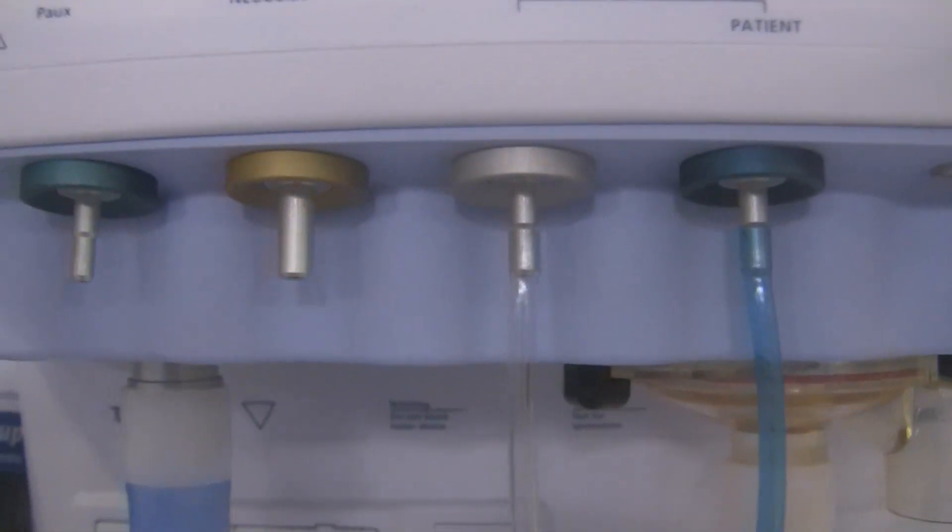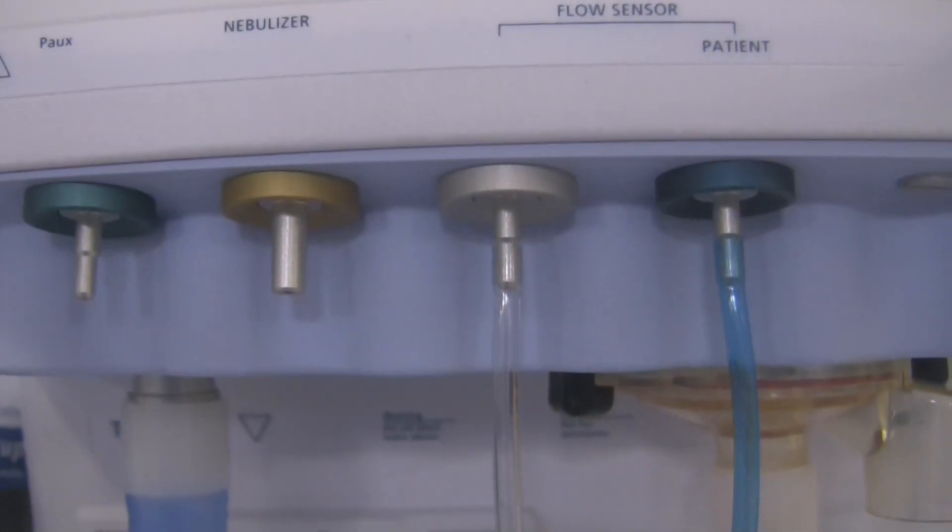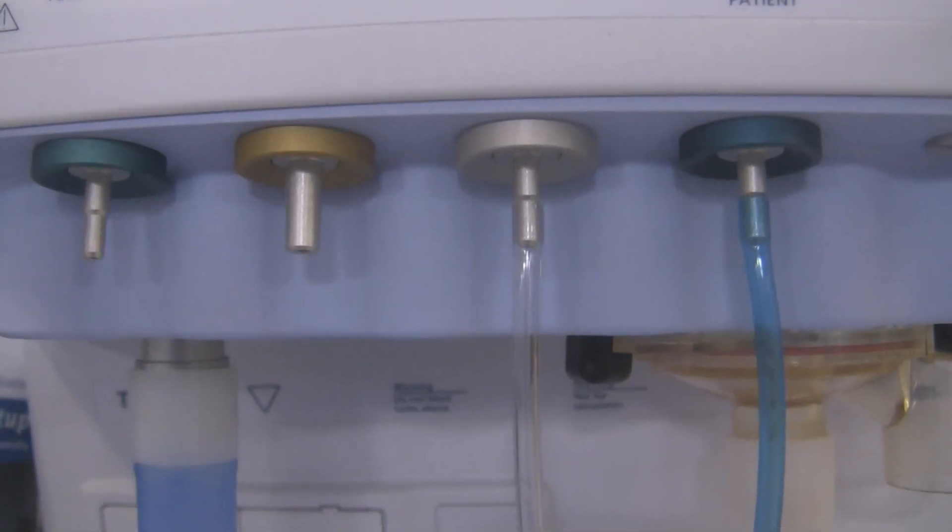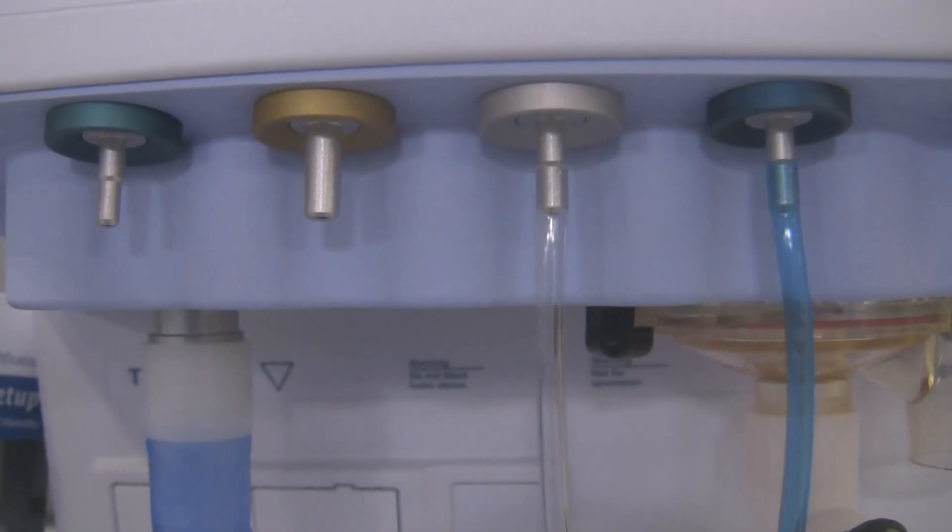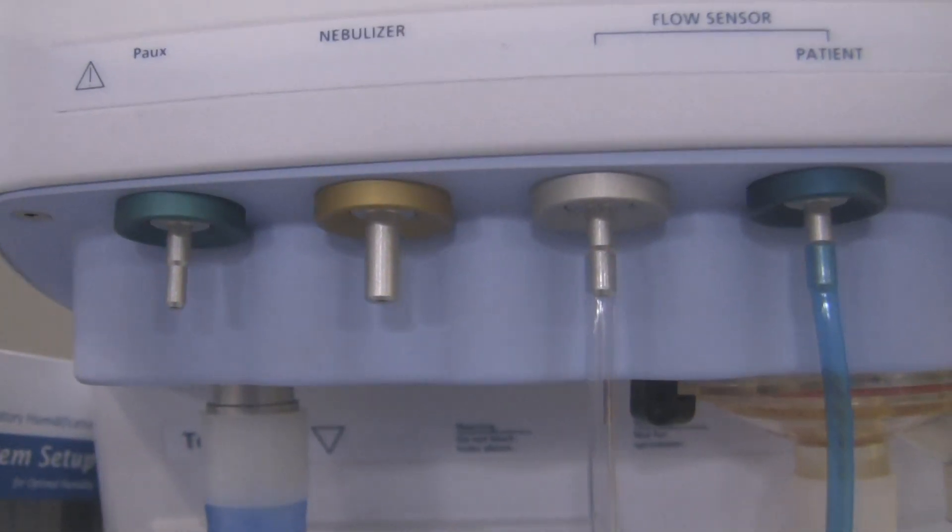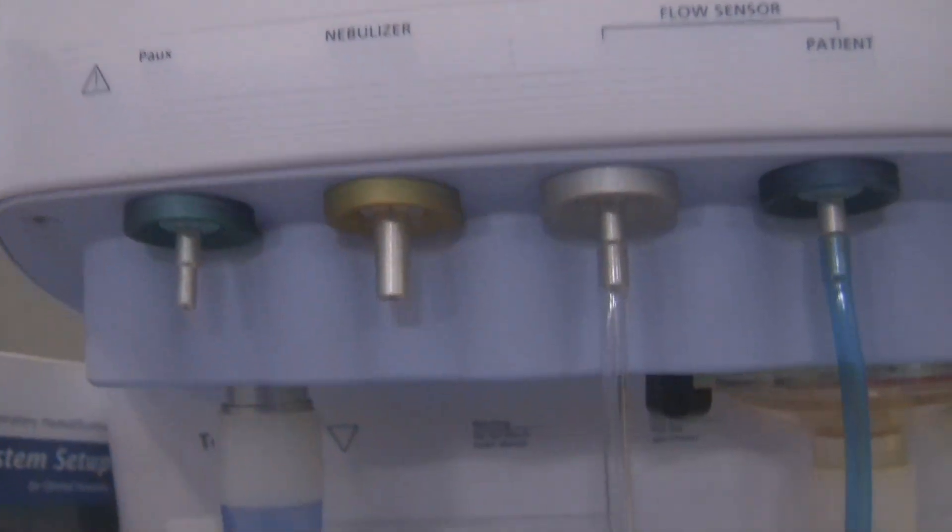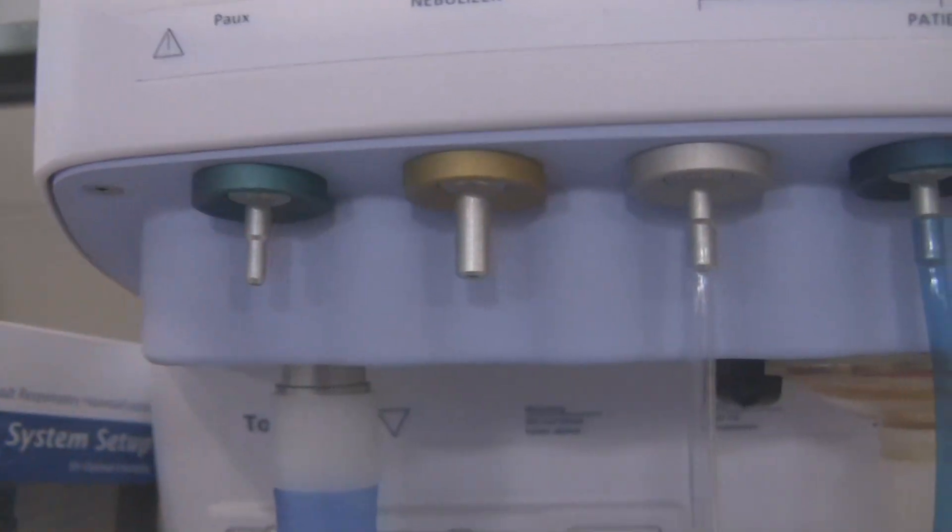The nebulizer, if you wanted to run an internal neb to the patient, a small volume nebulizer to aerosolize any kind of drugs you want to administer to your patient, this is where you'd hook it up to. And then this is just an auxiliary pressure port.